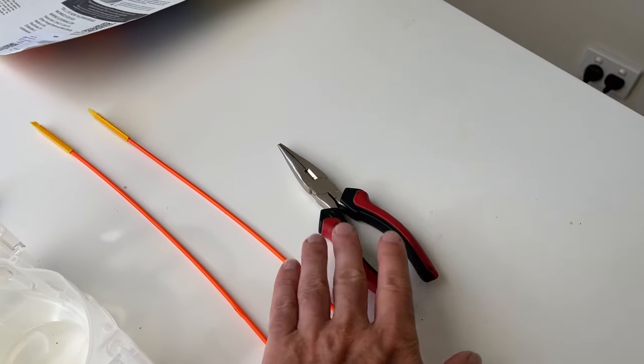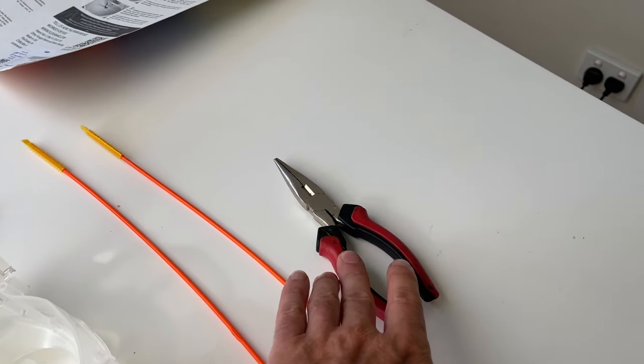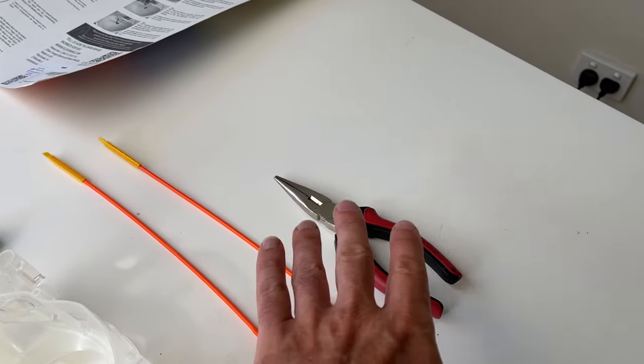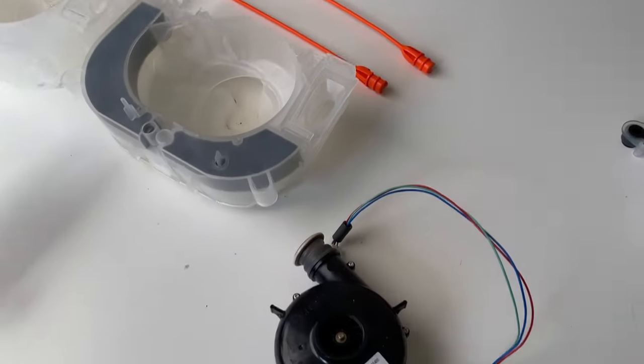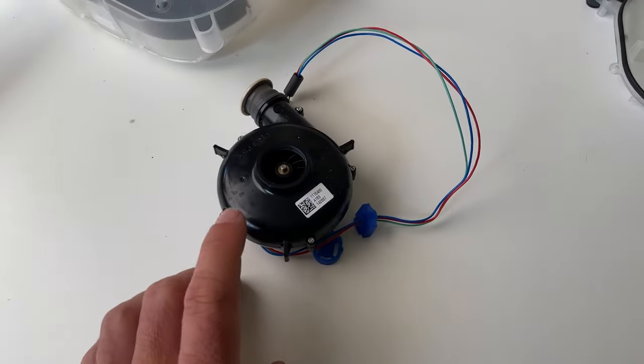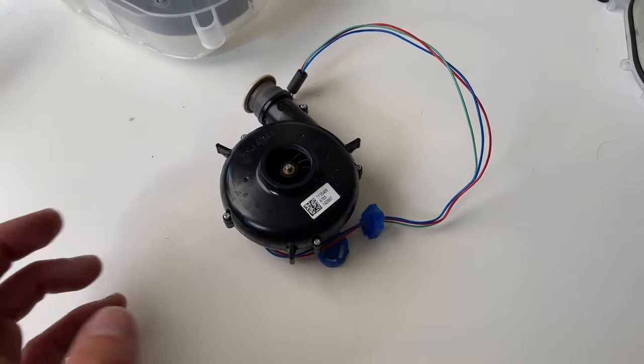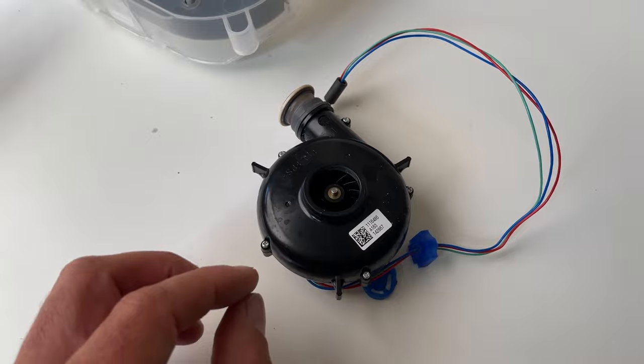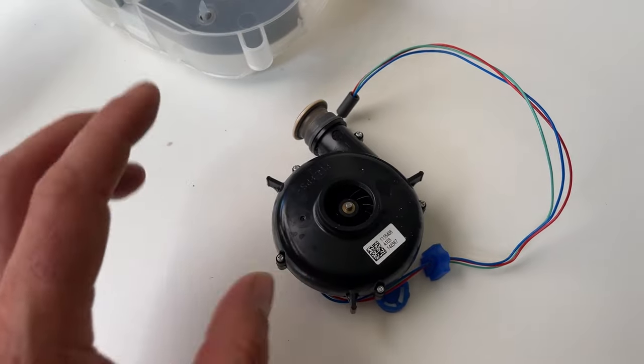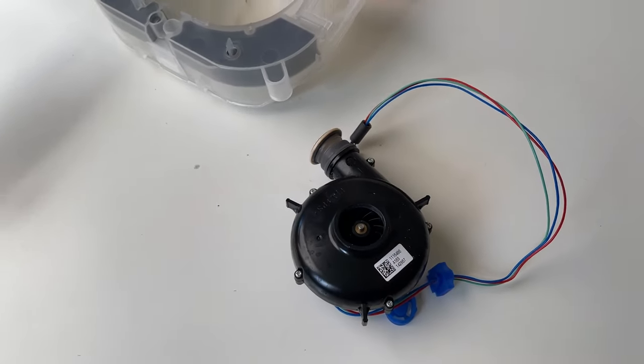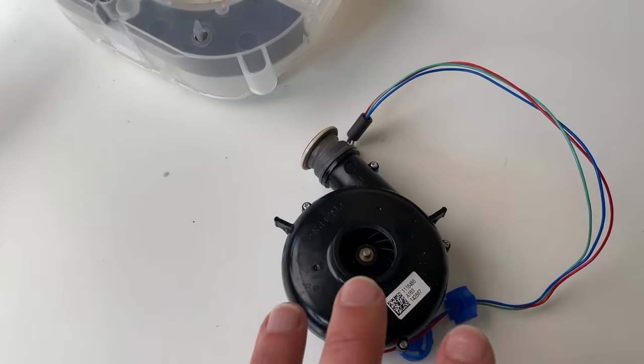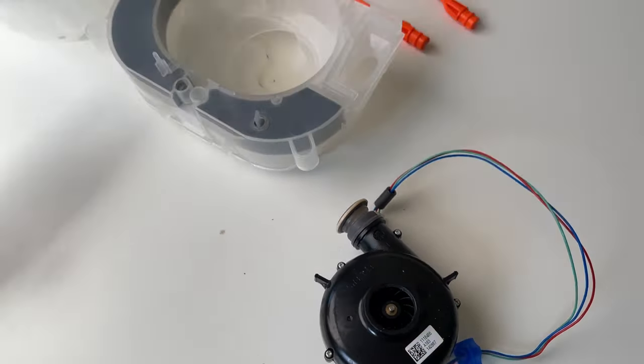Suppliers, you might not necessarily need some of these, but I've got them here anyway. I'm also going to show you, while you've taken your motor out, how you can quickly take out the screws, give your motor a quick clean as well, just to make sure there's no foam inside the motor.